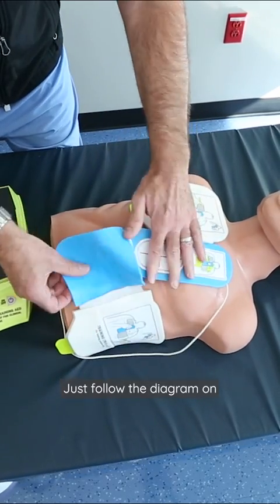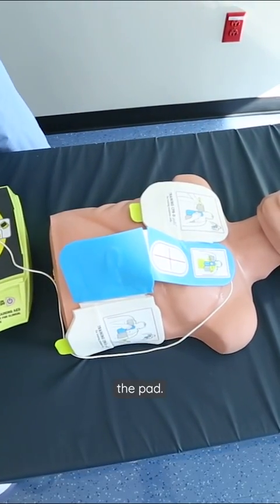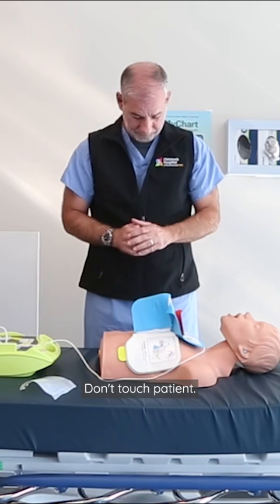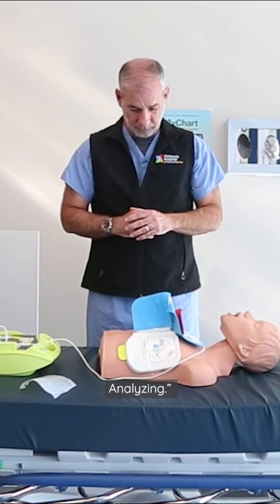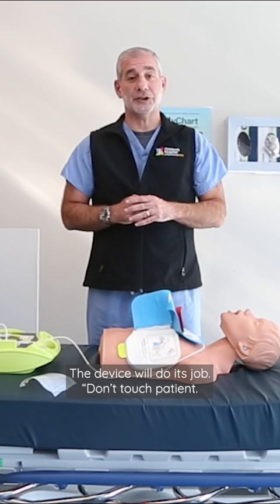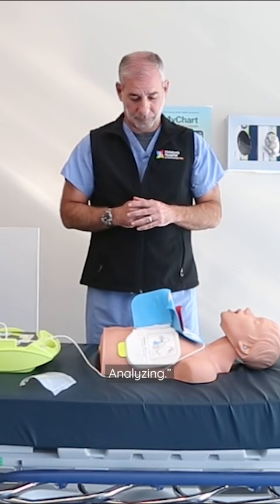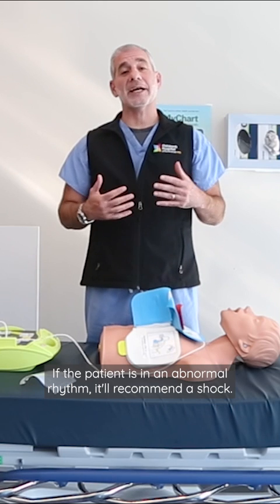Just follow the diagram on the pad. Once the pads are attached, the device instructs: Don't touch the patient. Analyze. The device will do its job — if the patient is in an abnormal rhythm, it will recommend a shock.